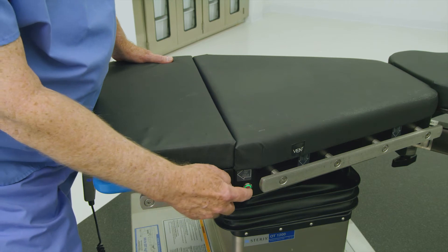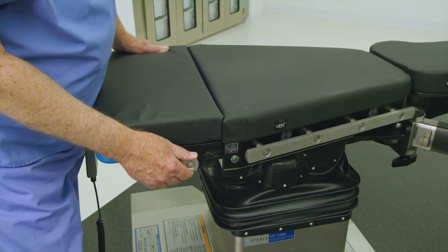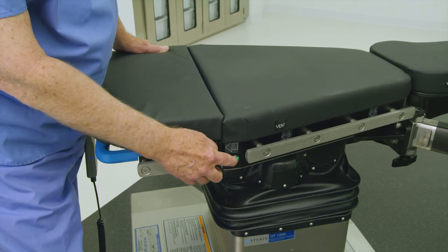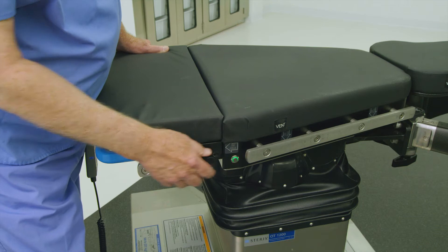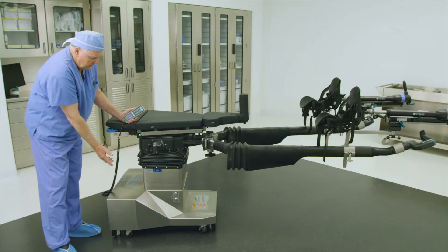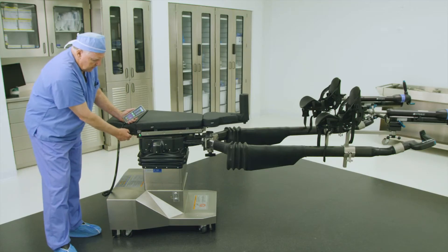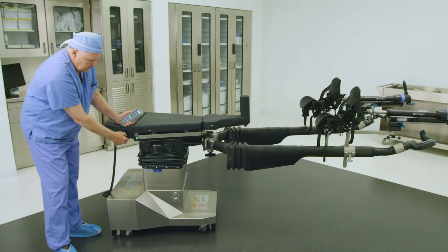Press and hold the manual green unlatch button located on either side of the tabletop, and then physically push the tabletop laterally left or right until it locks in position.